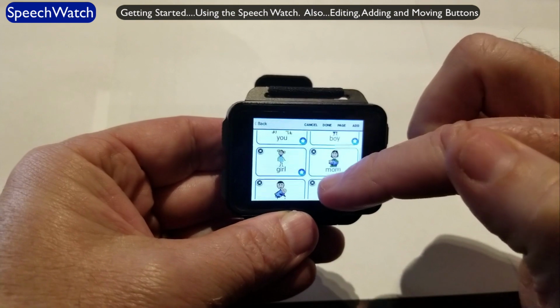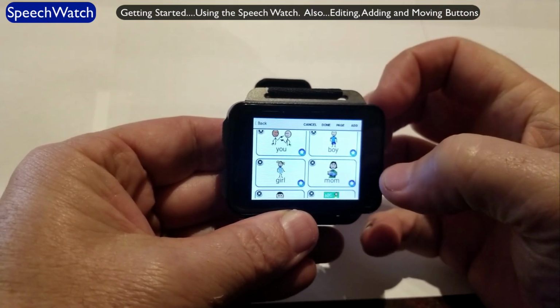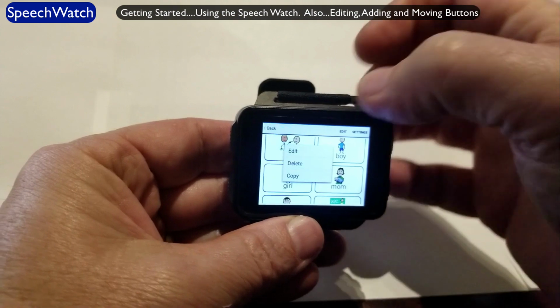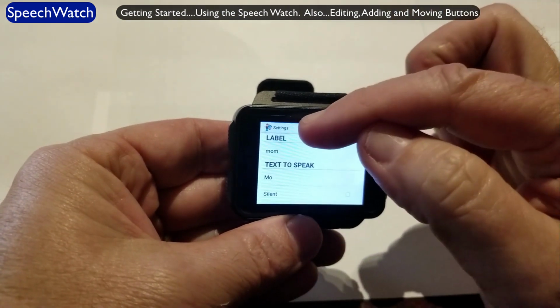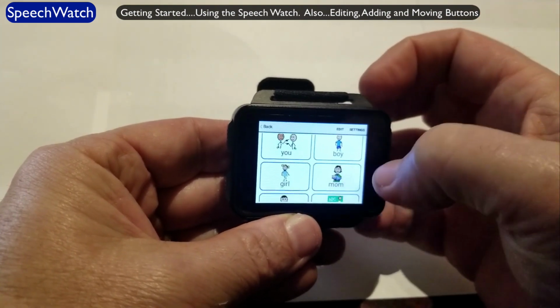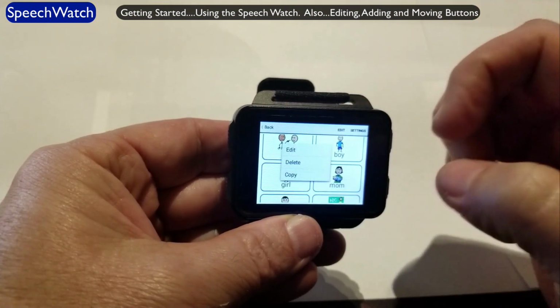And let me change this one here. It says Mom. I'm going to change it to Mother. So again, if I touch anywhere in the middle of the button, I go into the edit mode: edit, delete, or copy. I will select edit. The label says mom. That's what you're actually seeing on the button. Let me go back. See where it says mom? I'm going to hit edit, touch the button.